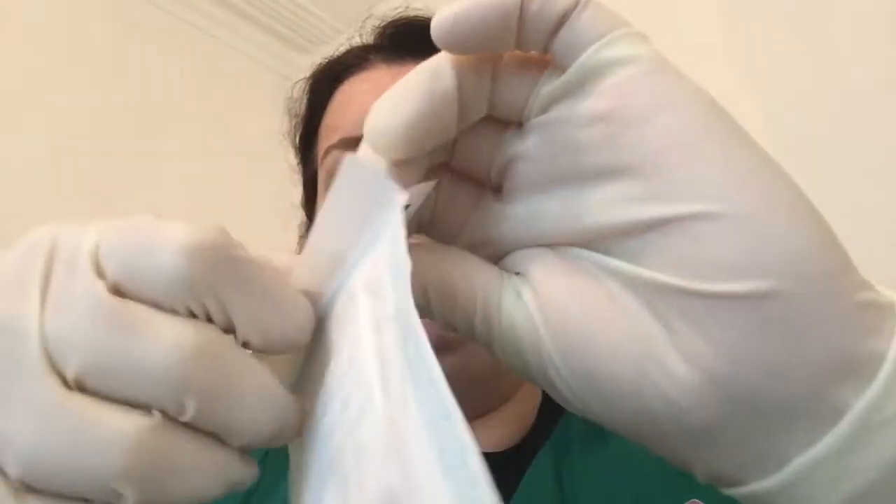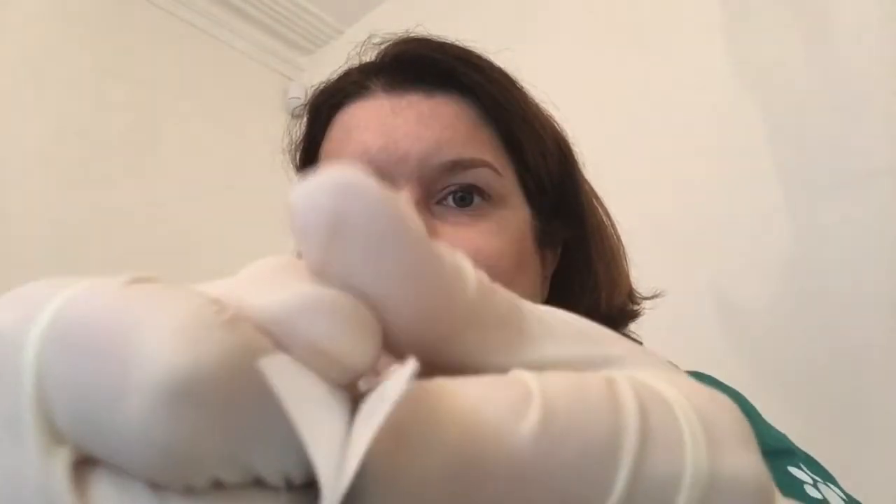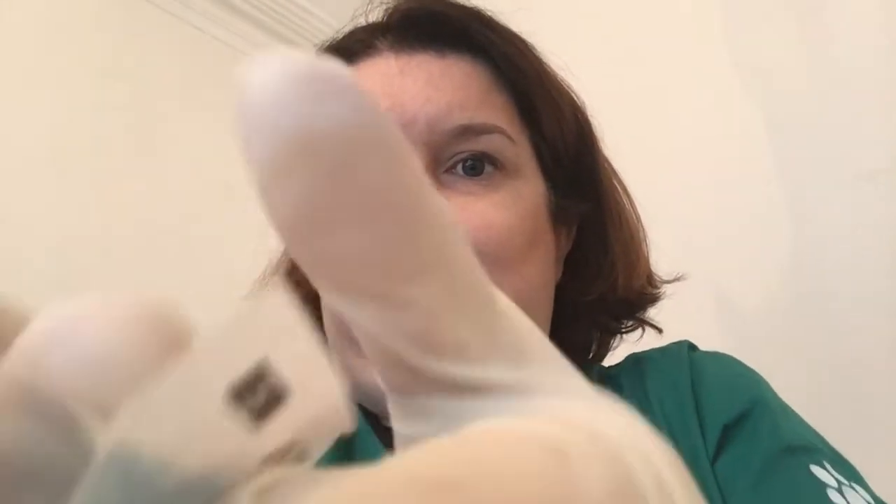So I've got my gloves on and what I can do is open it like this. You can see one side is non-shiny and one side is shiny. What this tells us is the shiny side comes under the label. So we would normally open it with the label side up, but actually that side is shiny. So I'm going to always, when I think of these for the exam, pick it up, turn it over, and open it from the back.